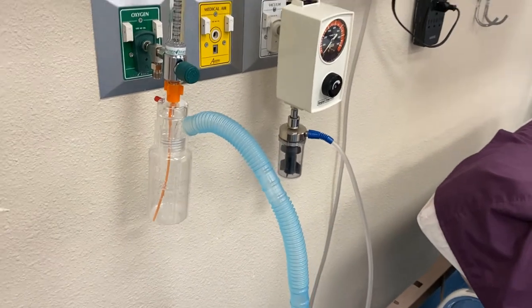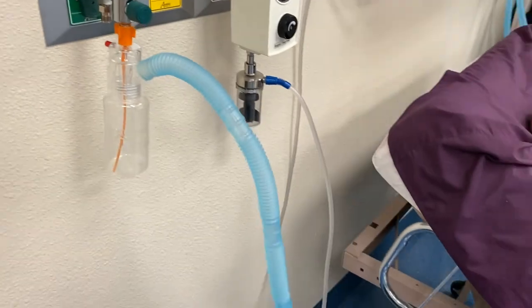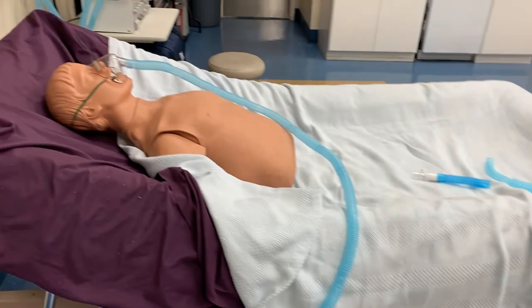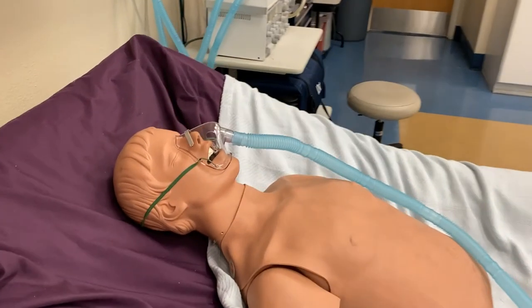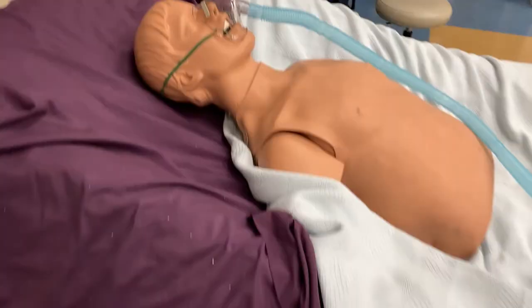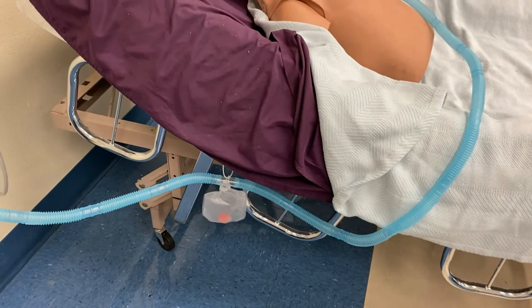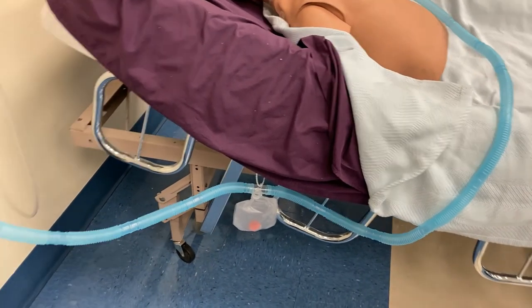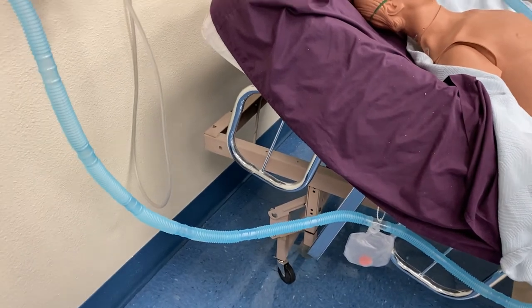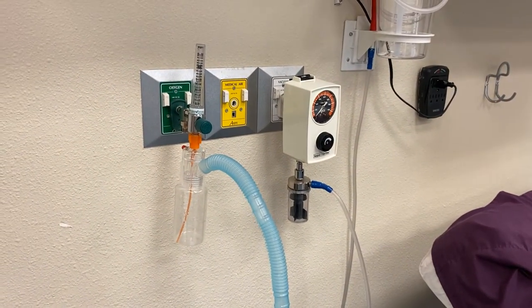You're going to want to utilize your blender — connect this to the blender and dial in the FiO2 that the physician has ordered. Now, very much like our bland aerosol setup, we're going to set the flow, get the flow into the tubing, and have a drain bag routed all the way over to the patient. In the case of a continuous aerosol of medication, the drain bag is less important because the medication is usually going to be delivered just over an hour or so — most likely not enough time to have a lot of rain-out generated like you would with a bland aerosol nebulizer.